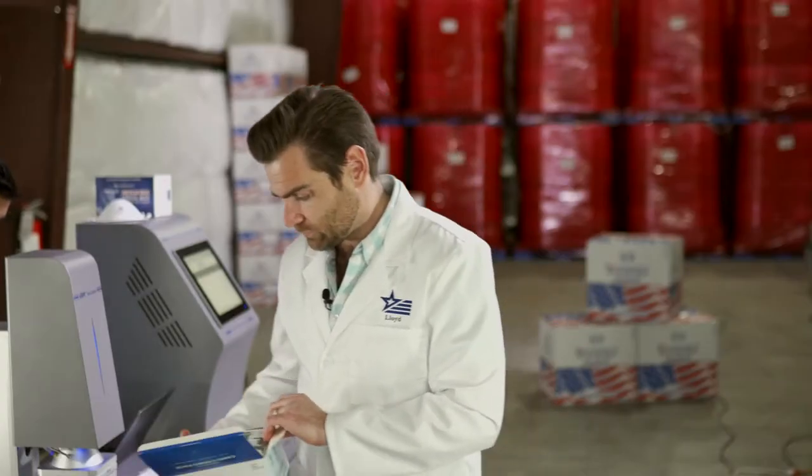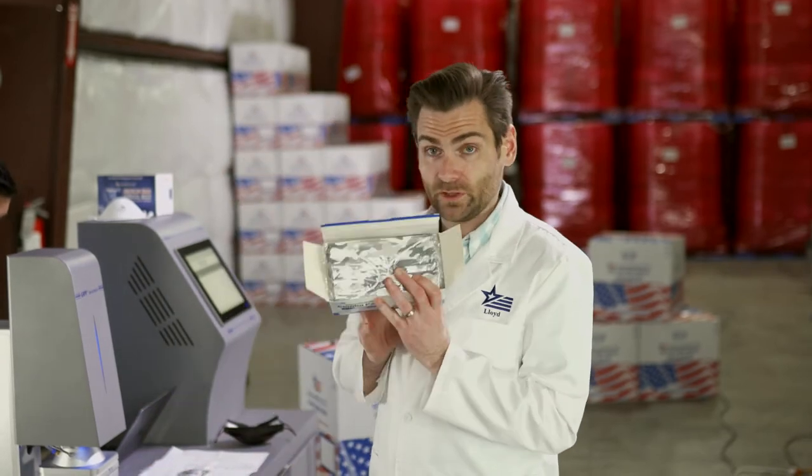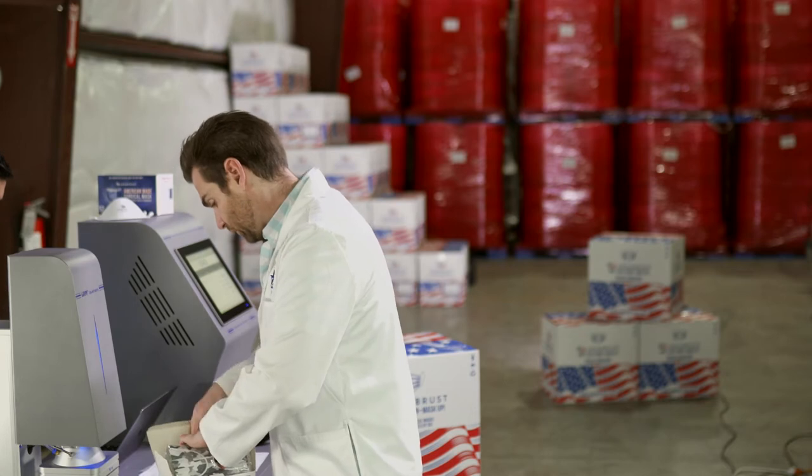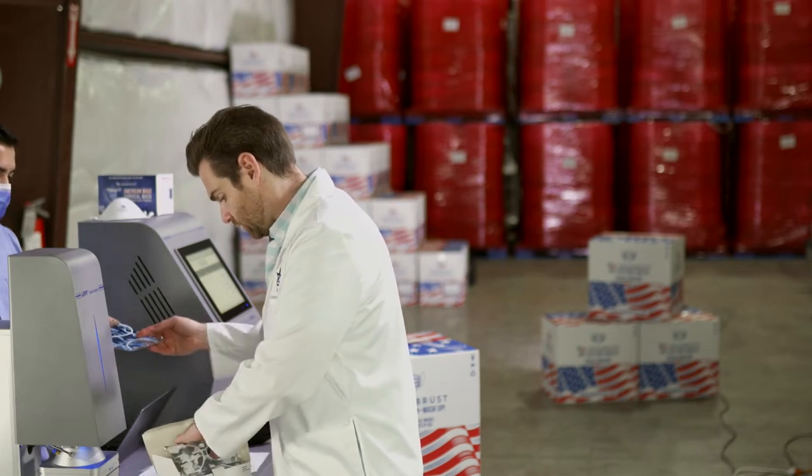I love the three little bullet points on the top: effective, which is good; painless; soft on the skin — I don't quite understand that last one. Looks like they have two colors in here, which is pretty cool. They're really individually packing those in. I'll try to pull out the different colors.